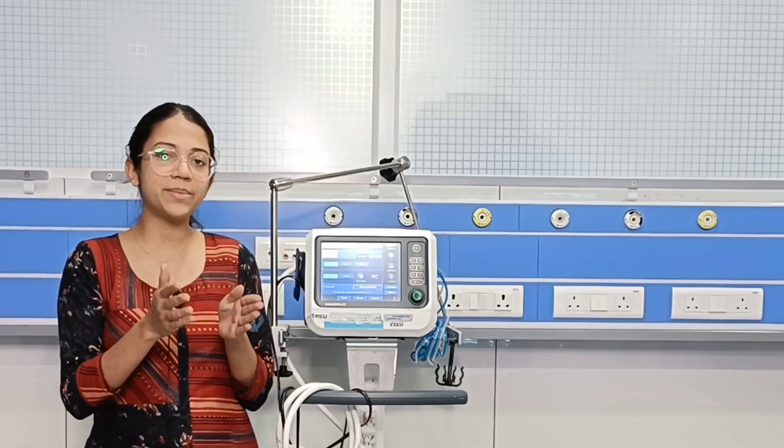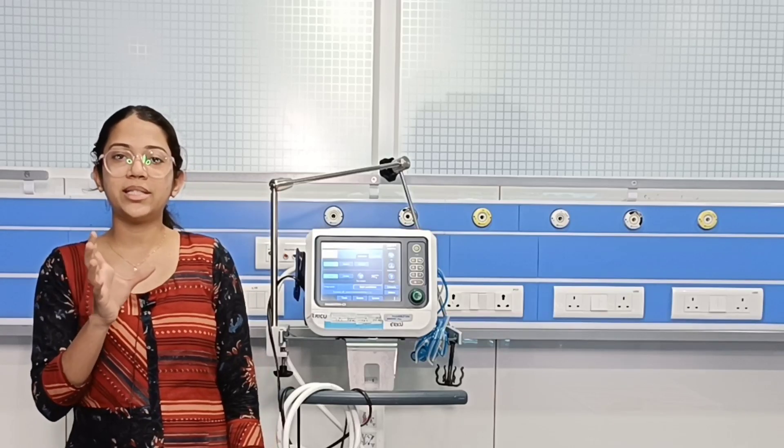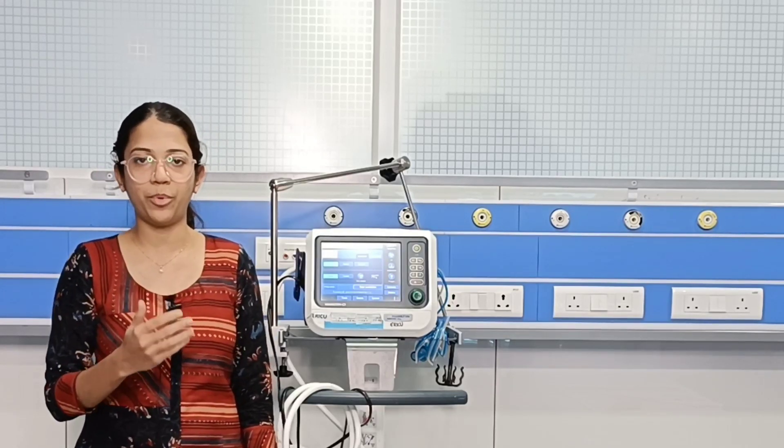In this mode there is a synchronization window, meaning the ventilator will be sensing for the patient to take a trigger. Suppose we keep the respiratory rate as 10 per minute — just before the 6th second, the ventilator will be sensing for the patient's breath, and if the patient triggers, the ventilator will support that.